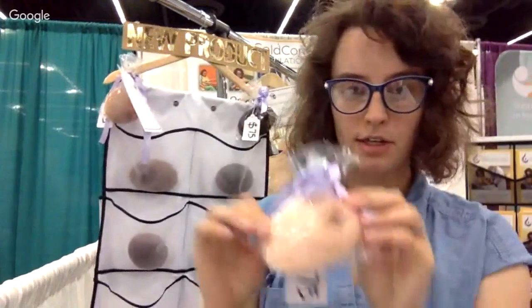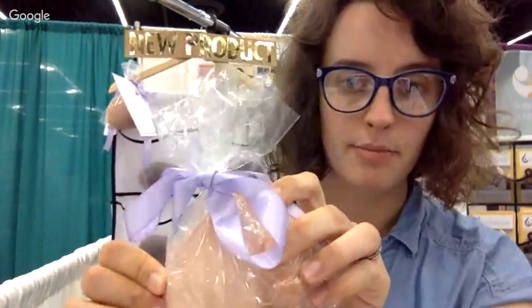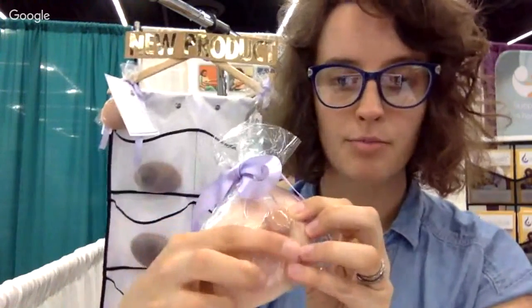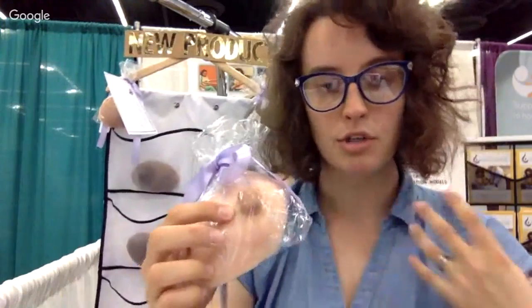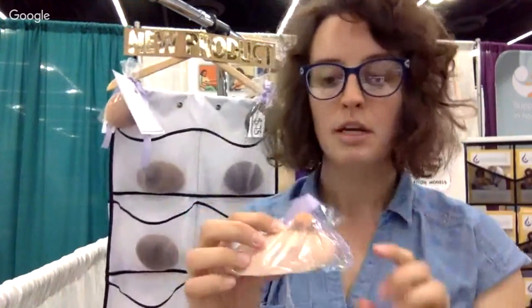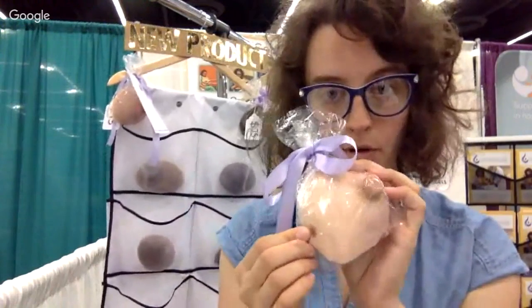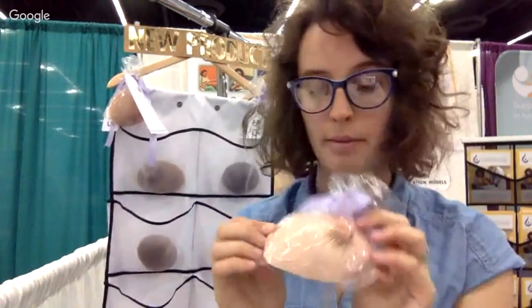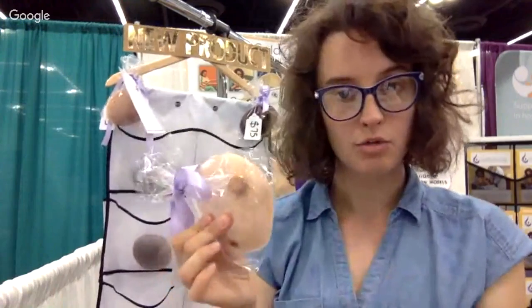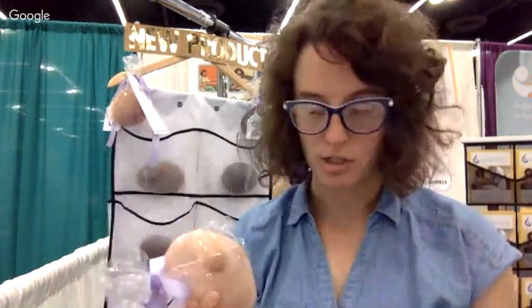On this nipple specifically, you'll see that there is nipple damage at the tip right there. The areola itself is pretty small. The areola is the darker skin around the nipple, not the nipple itself. And then at the side here, we have maybe a birthmark, maybe melanoma, maybe an accessory nipple — something for your students to think about. These are really great comprehensive training tools in breast health, lactation, and really dermatology, pathology, and infectious disease.